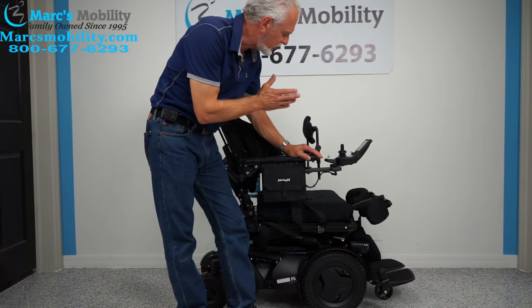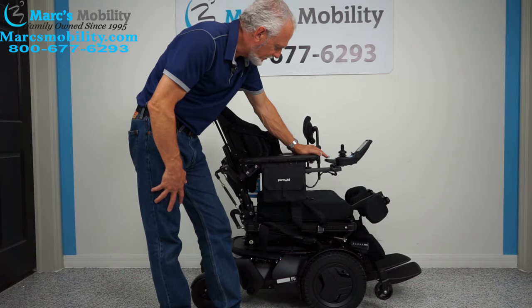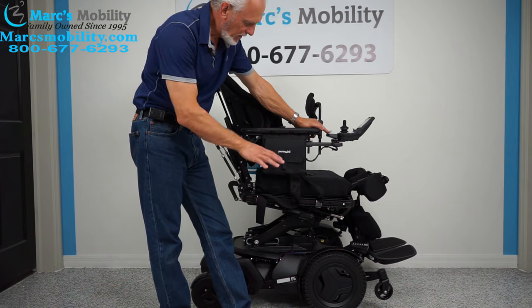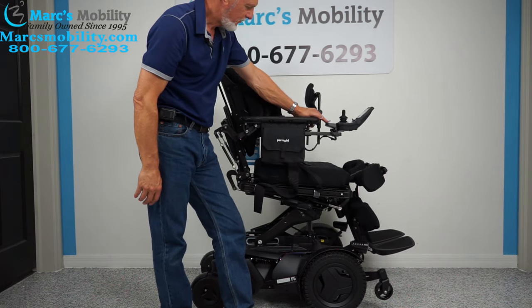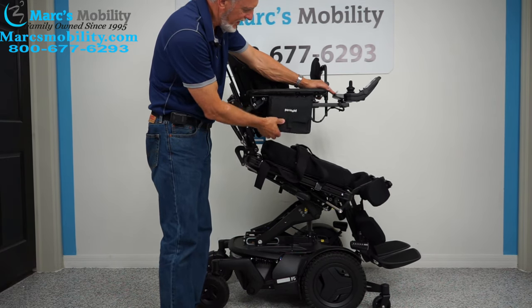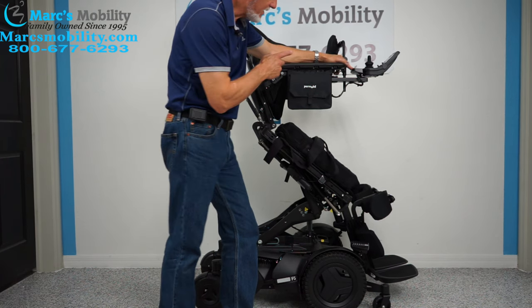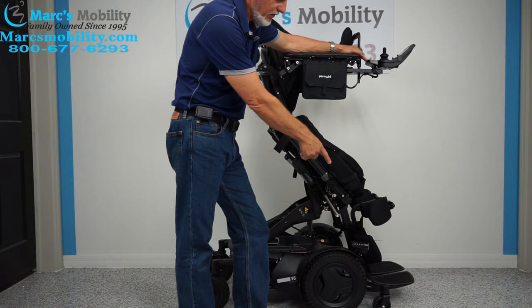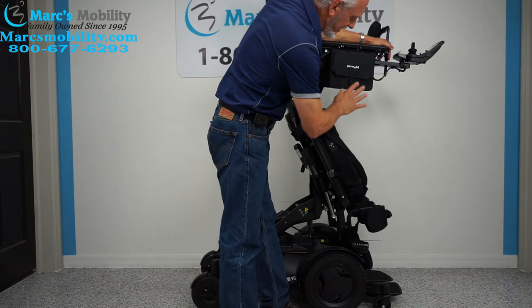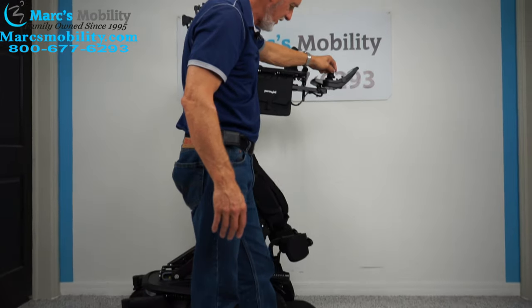I'm going to use the switch box — it's quicker. If I hold the button back, you'll see the seat start going up. You're going to start at roughly 22 inches when you begin going up. It'll do all kinds of fancy movements — that's normal — and by the time it's all the way up, the person will be standing. The front tip wheels, which started about four inches off the ground, will go all the way down to the ground as the seat stands up.